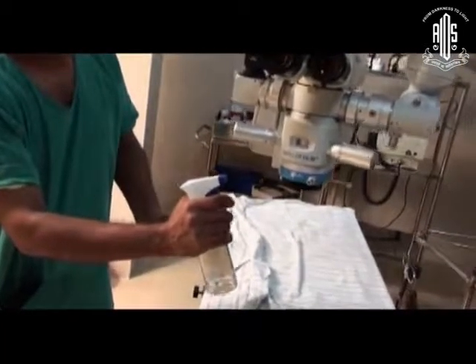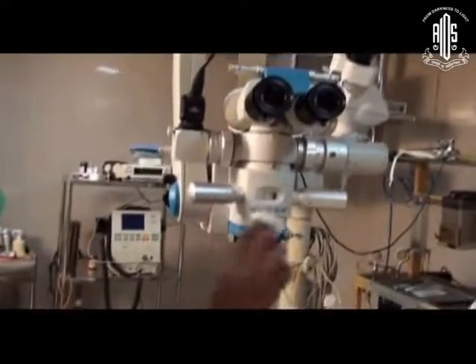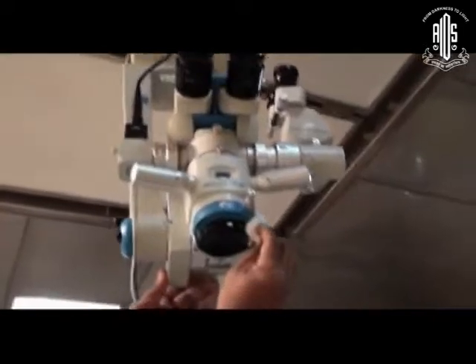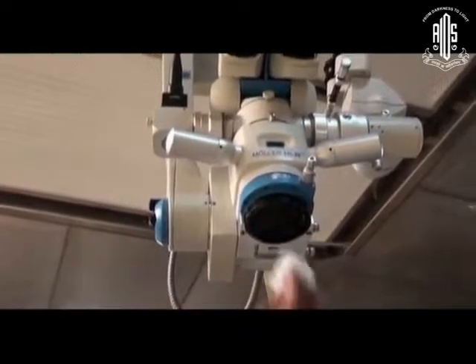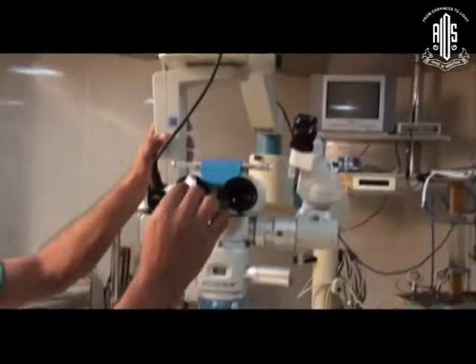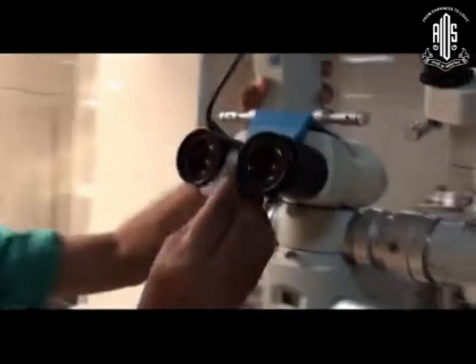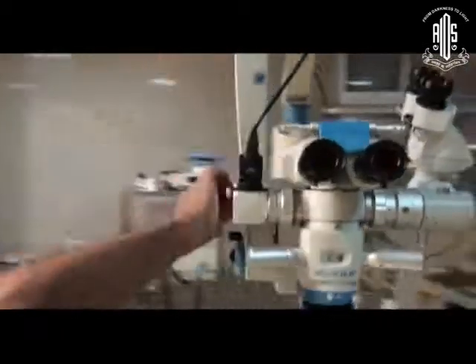Now we go into hand hygiene. Before entering the theatre, a casual hand wash is important. When disinfecting the microscope, do not spray directly onto it — you will spoil the optics. Apply disinfectant onto cotton and rub over it. This is especially important in ophthalmology: any sediment on the microscope when you adjust it will fall directly onto the eye and cause infection. We normally skip this step, but please disinfect the microscope before starting theatre.